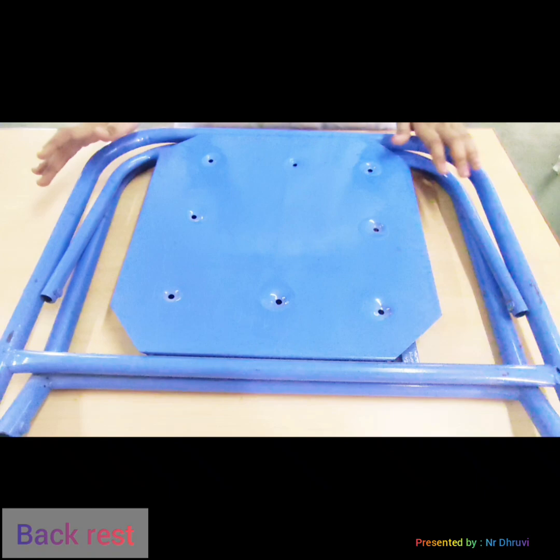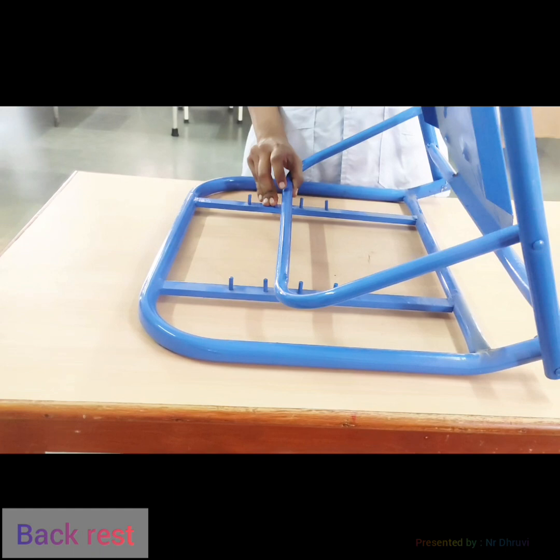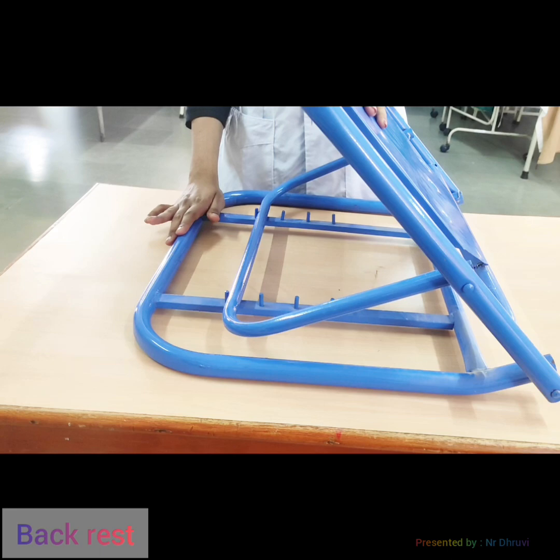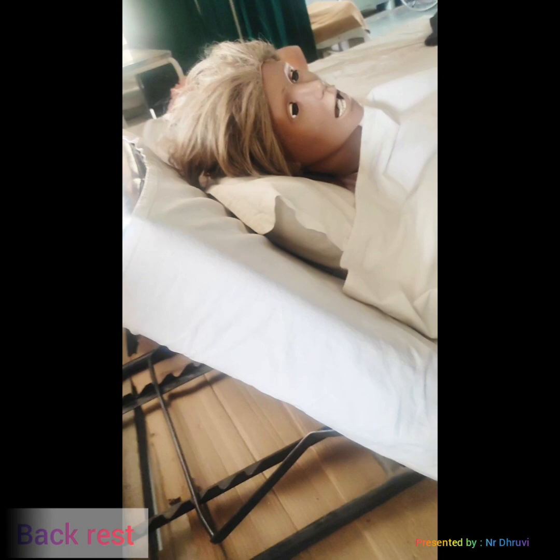You have to open the backrest like this and adjust it as per the patient's condition, position, or comfort level.